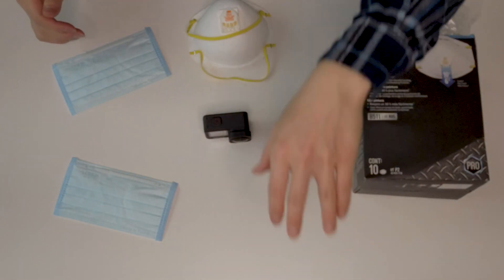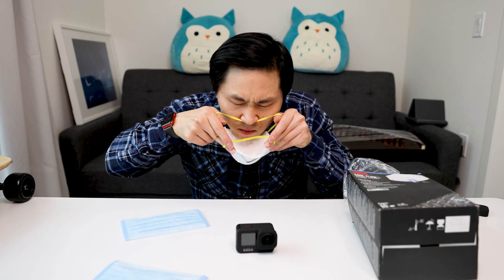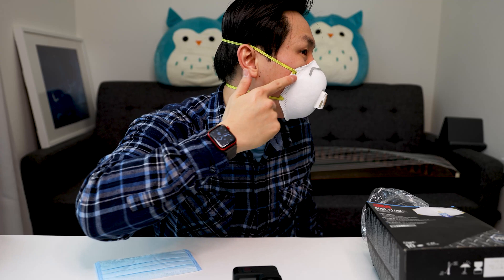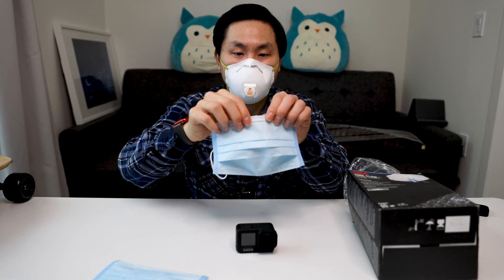Okay, so let's do it. Let me show you guys how it should be done. Hold the rubber band like this first. Make sure you have a tight fit on the N95 first. Then check the side. Make sure all the seals are intact. And then press down the pin on your nose. And then from there, we have another layer of surgical mask.